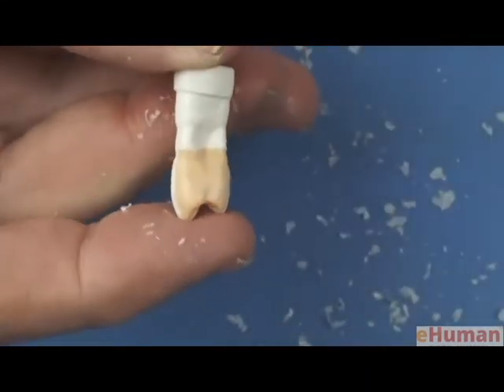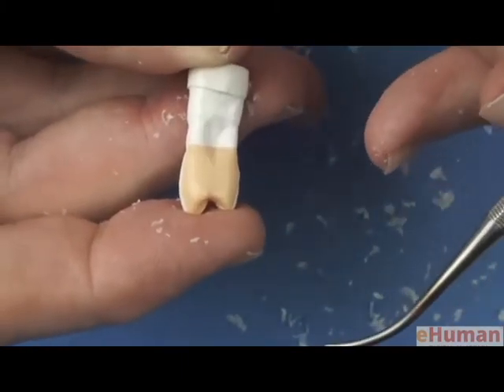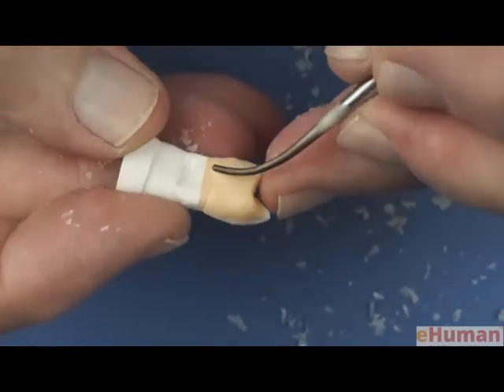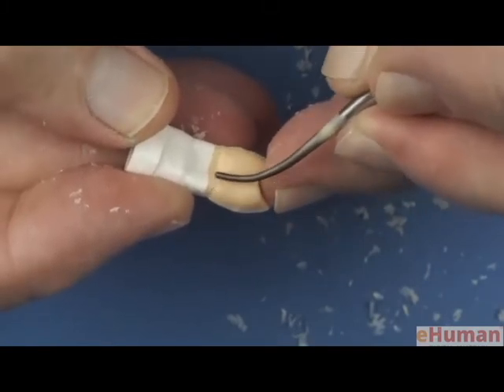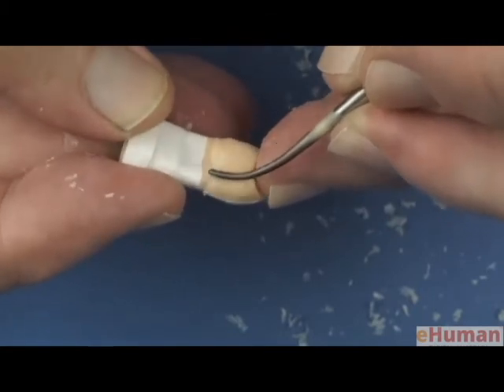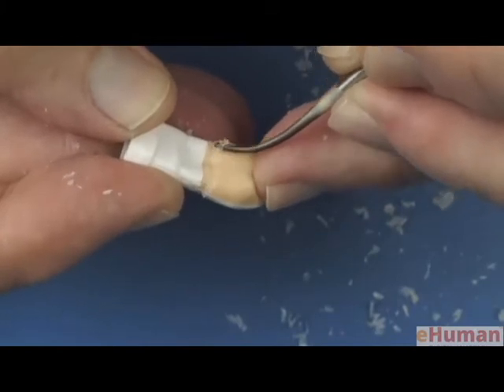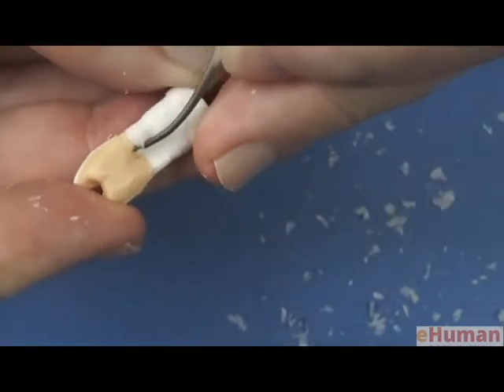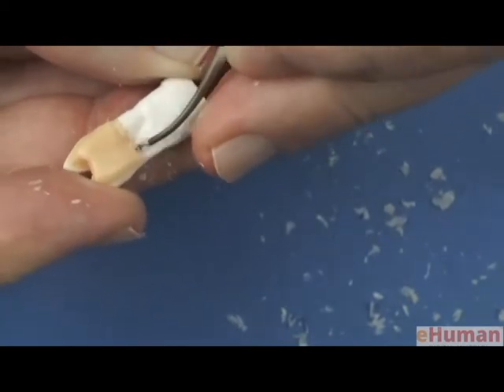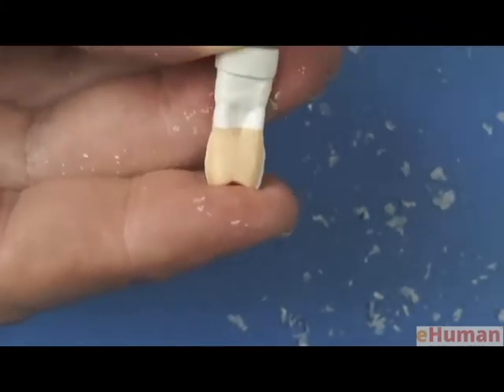And another little tip that you can do, you can take the wax adding instrument while it's cold, not hot, and it will function as a burnisher. And you can take that down into the surface, and notice if you apply medium pressure with this, not heated, it will burnish that transition, and you can make a nice transition from the root to the crown. So there are many ways you can carve this. Many instruments will work, but this is a particularly nice one for areas like this where you have a substantial concavity.